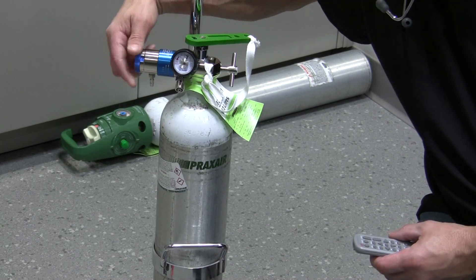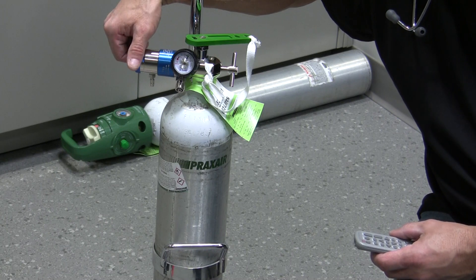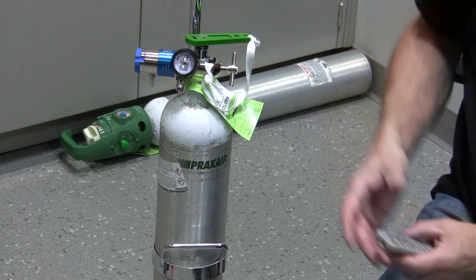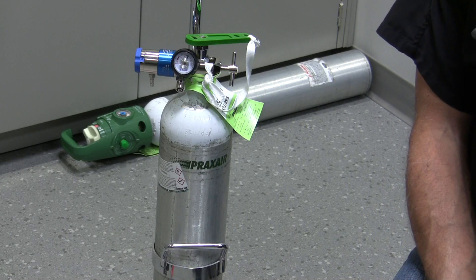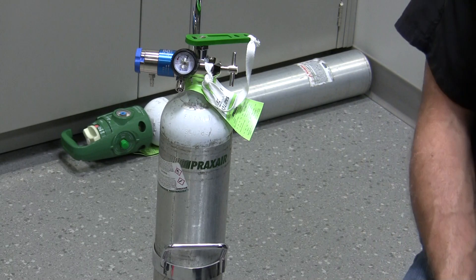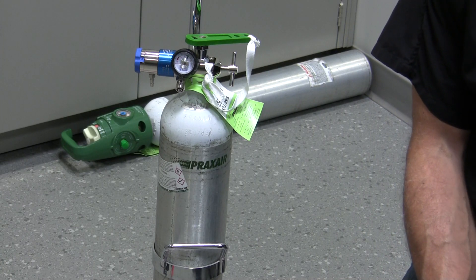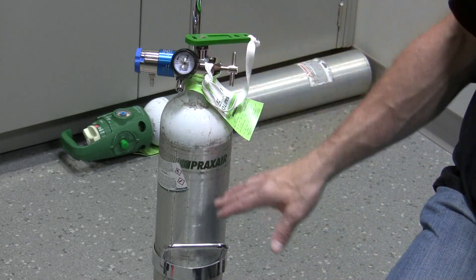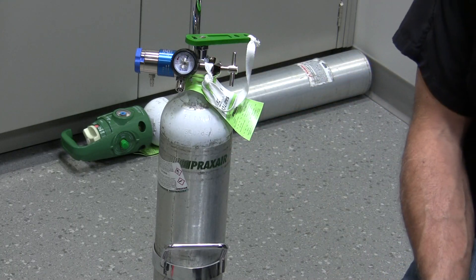The faster the flow coming out of this system going to the patient, the less time the cylinder is going to last. The flow of gas is dictated by the flow setting on this flow meter. If you turn the gas flow up, you can hear the gas coming out — we get a faster flow rate and use the tank up faster. When we turn this down, the flow gets slower and eventually shuts off. There are many different types of flow meters on regulators, so you'll have to become familiar with the type wherever you're working.